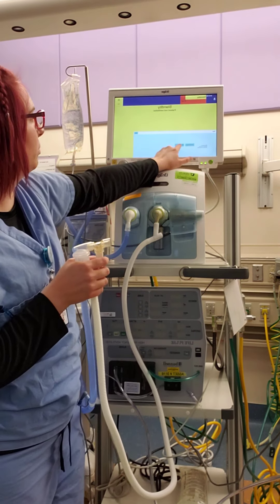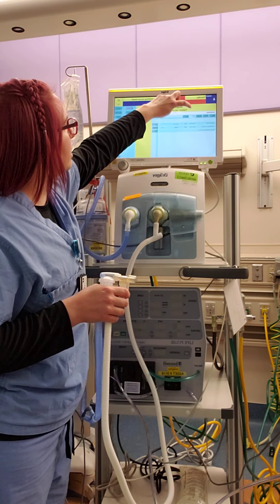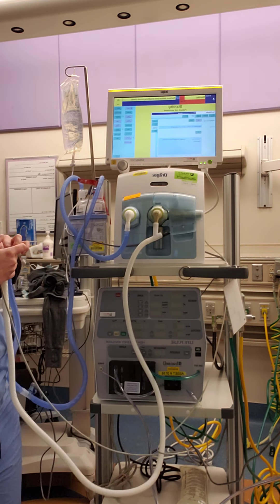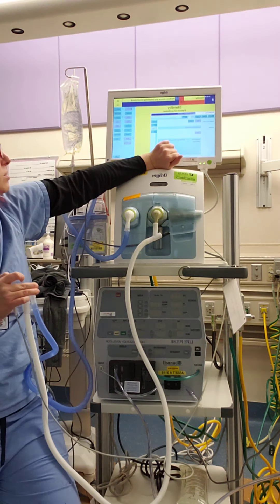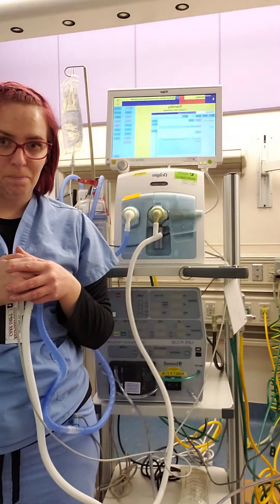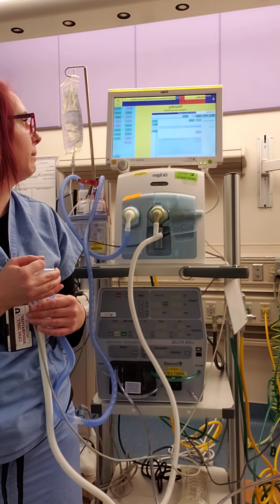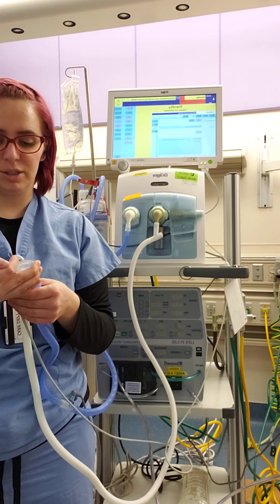So we're going to do our circuit test. We have the neonatal circuit — remember with the Draeger it's press, turn, select. System check, device check, breathing circuit check, and start. Essentially you're just trying to deliver one continuous pressure. You can put it into a NIV mode where you can deliver a small amount of breaths — typically between one to five per minute — and that is to do a recruitment breath or sigh breath. For this patient we're going to leave it on just one continuous pressure for our PEEP and not give a backup breath, because it's not needed at this time.